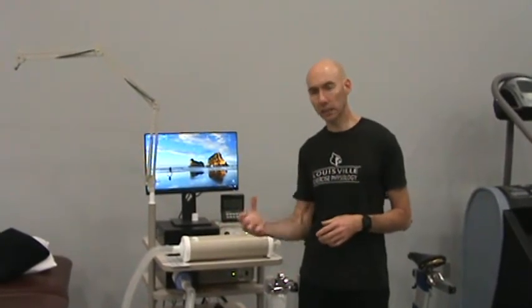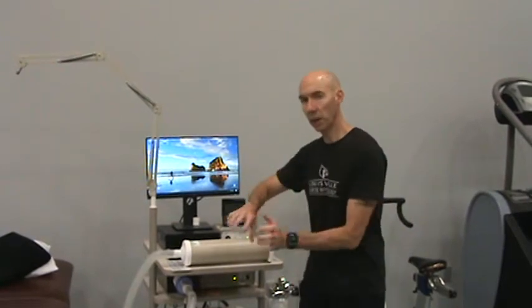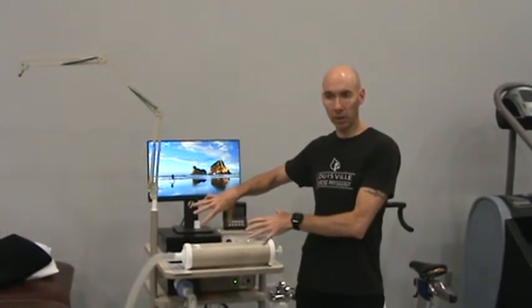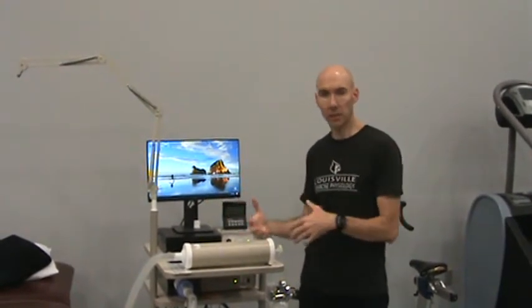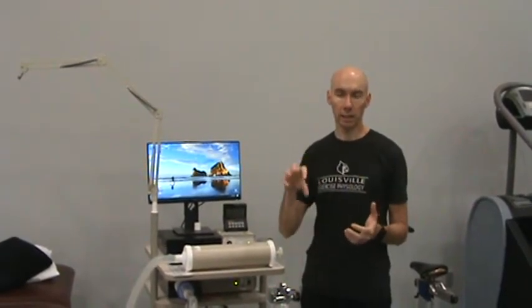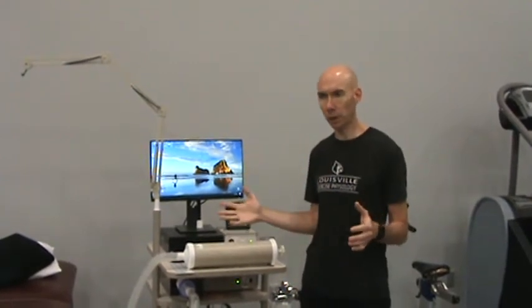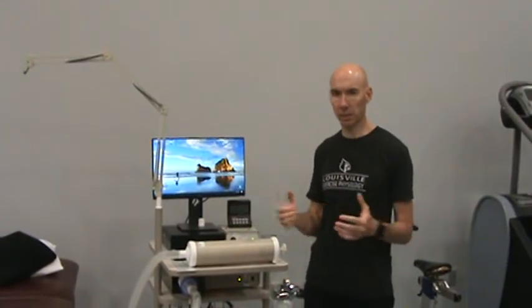Because during exercise, the subject is expiring very forcefully. That will force air through the metabolic cart. But during resting, because the breathing is going to be a lot less forceful, we do have to install a device in the back of the cart to suck the air through, keep the air moving through. And when we calibrate the cart, there are going to be some differences as well.